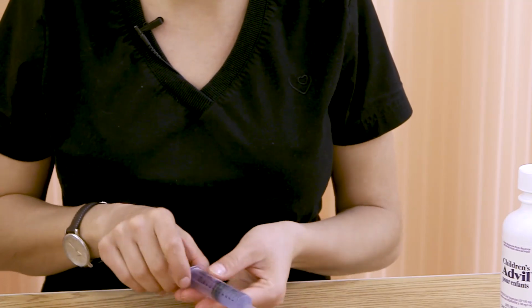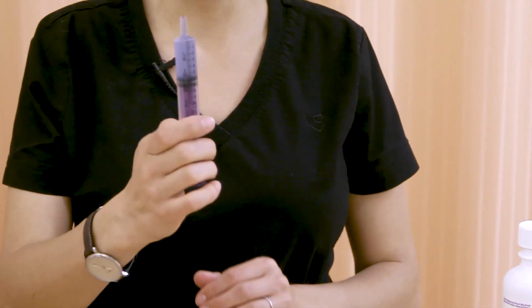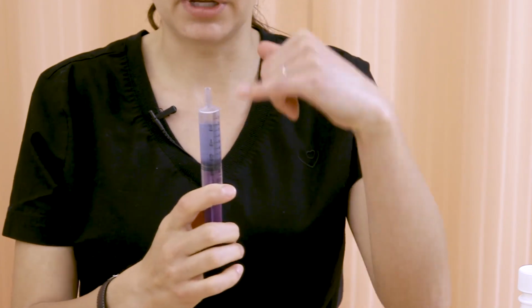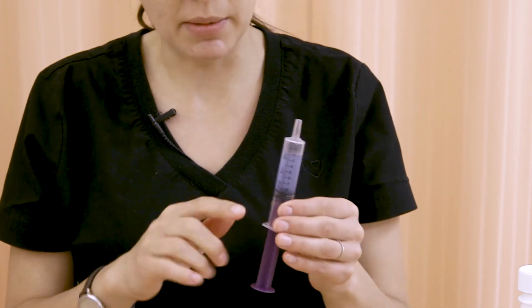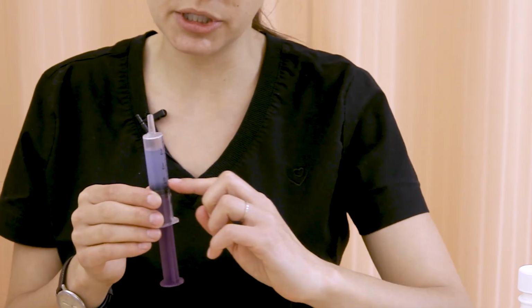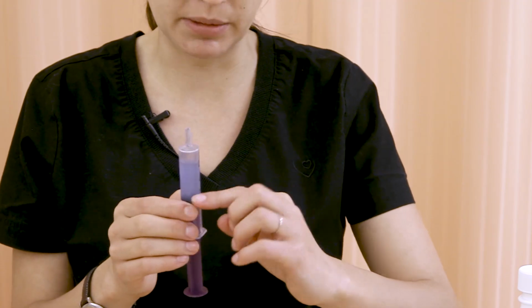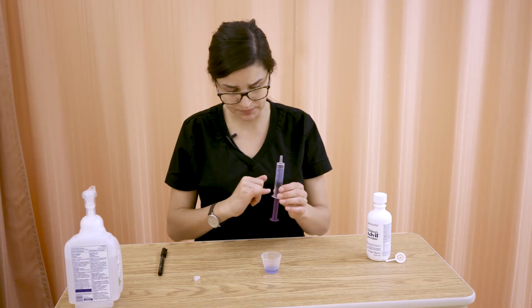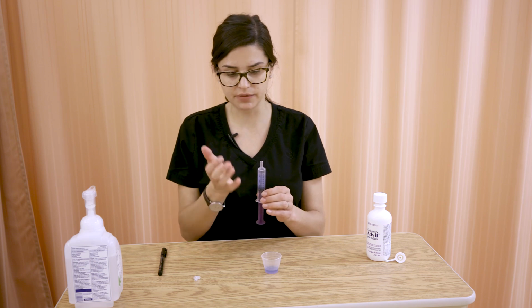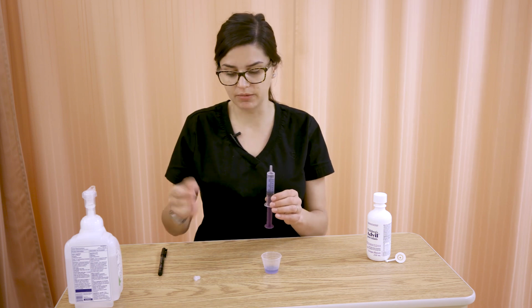So what I'm going to do now might seem a little bit strange, but I'm going to hold my syringe straight up and down, and I'm going to pull back so that we have just air at the top. And that's going to allow any bubbles that are at the bottom, and you especially want to check around that plunger area, that's where bubbles tend to linger, it's going to give them space to move up. Whereas if we keep that syringe full, we're not really giving the bubbles anywhere to go.